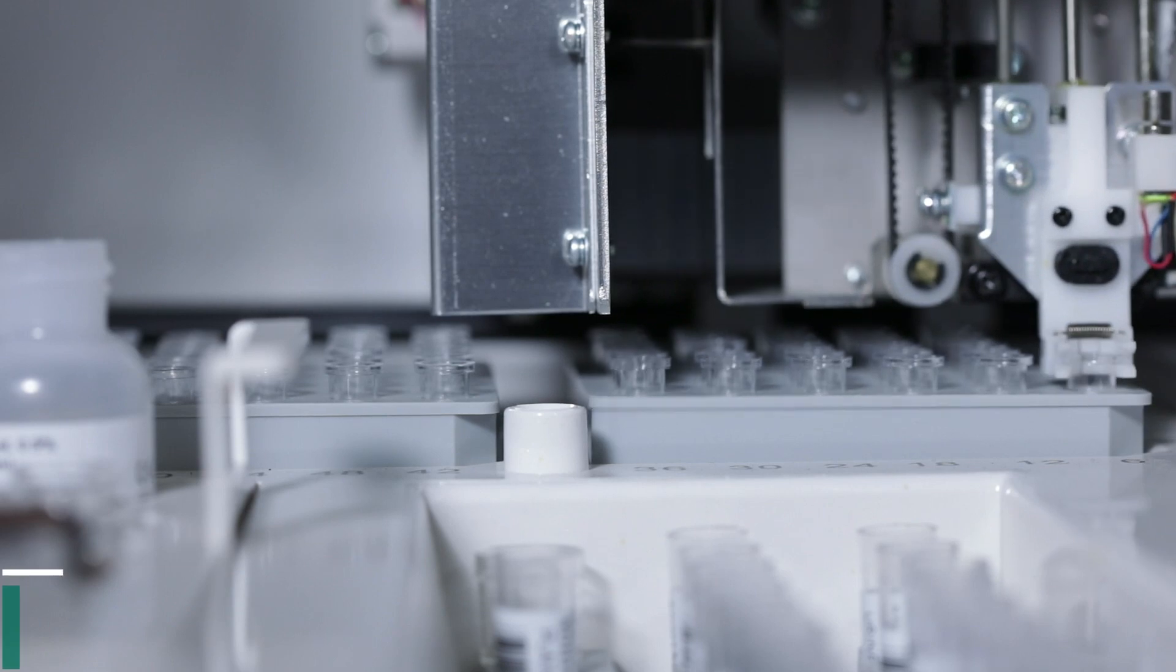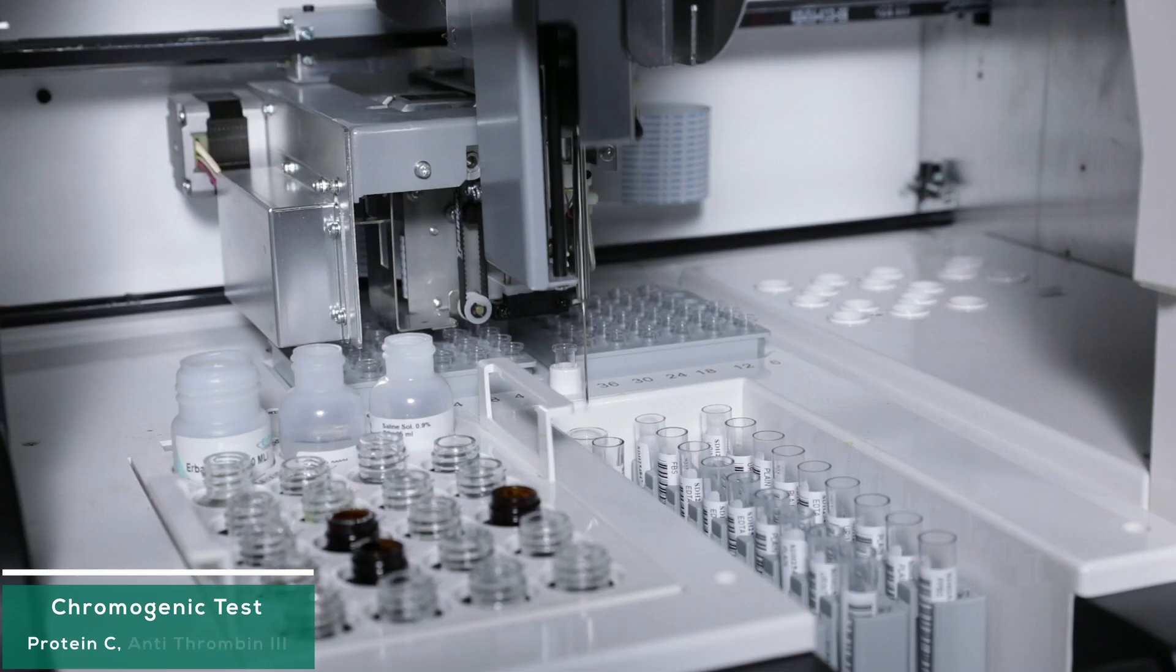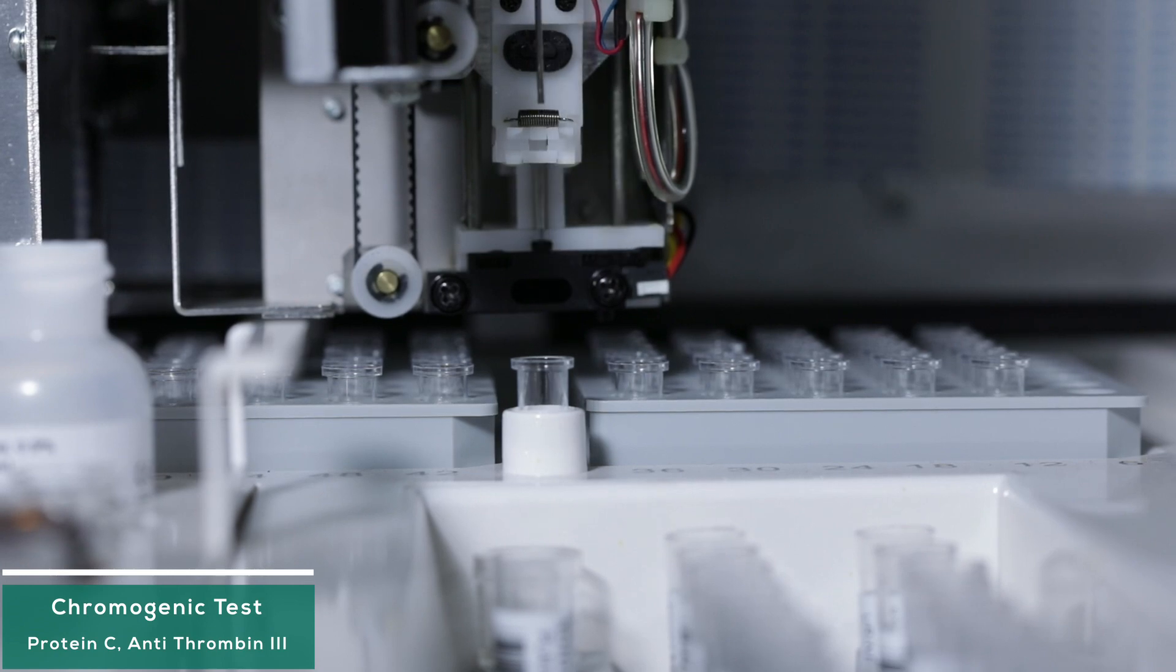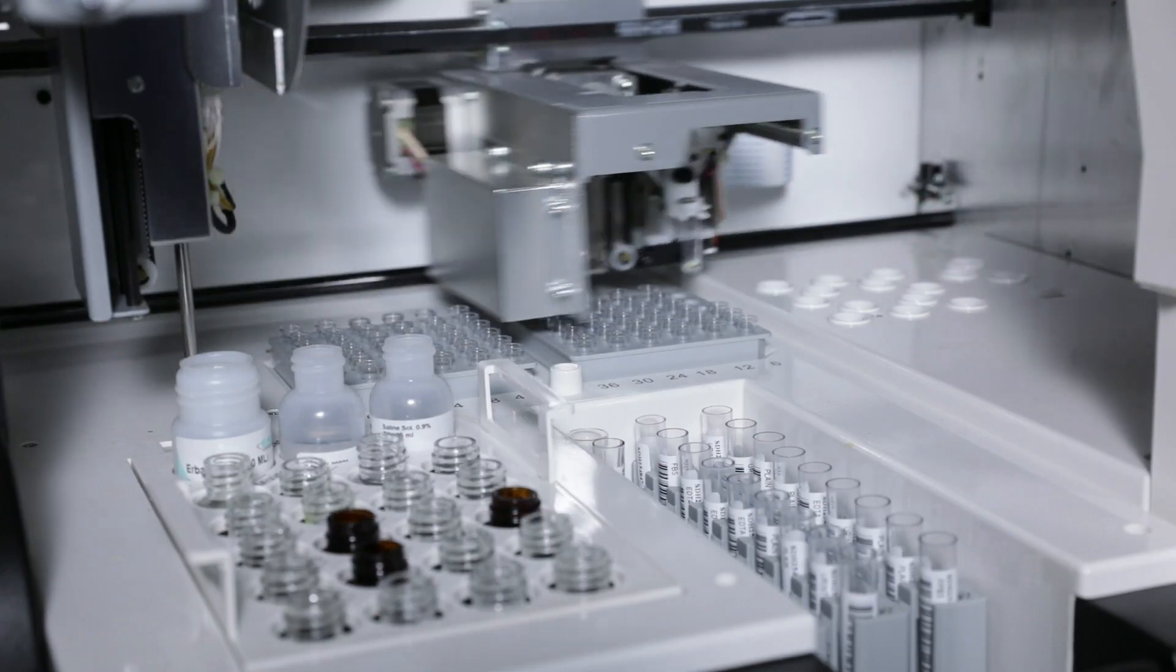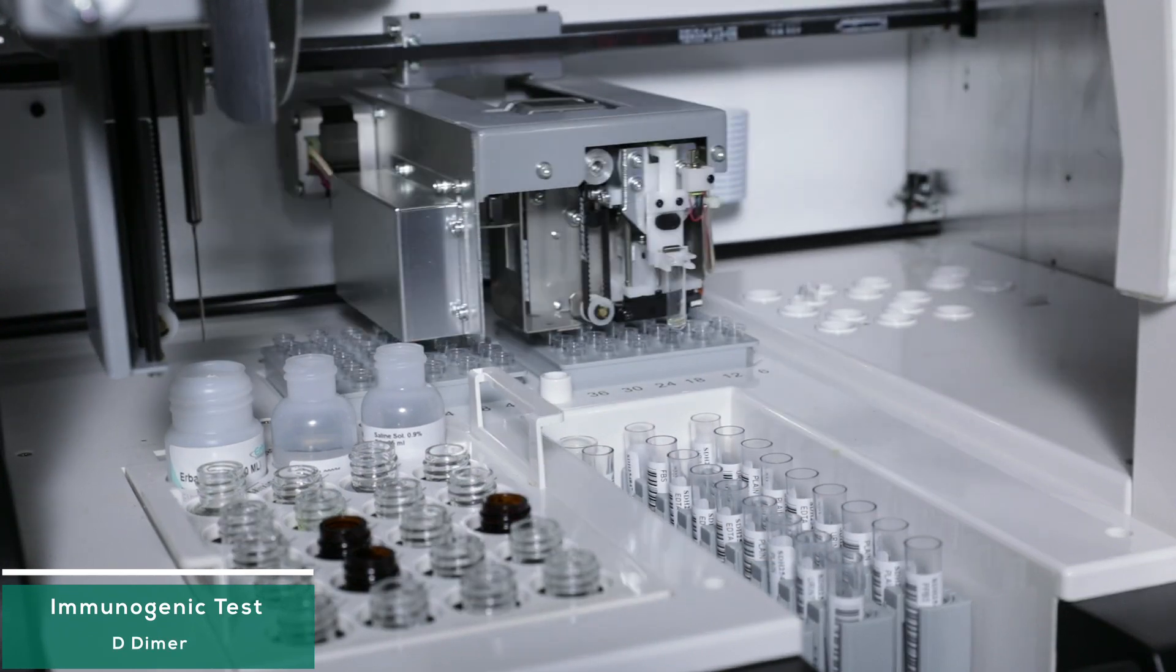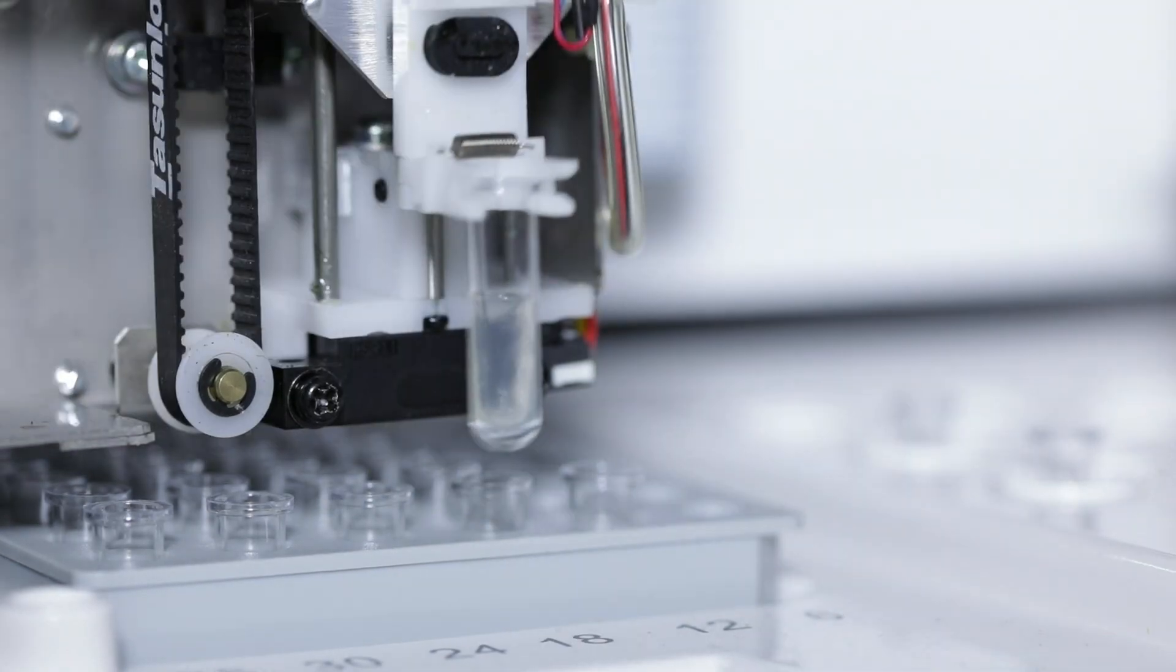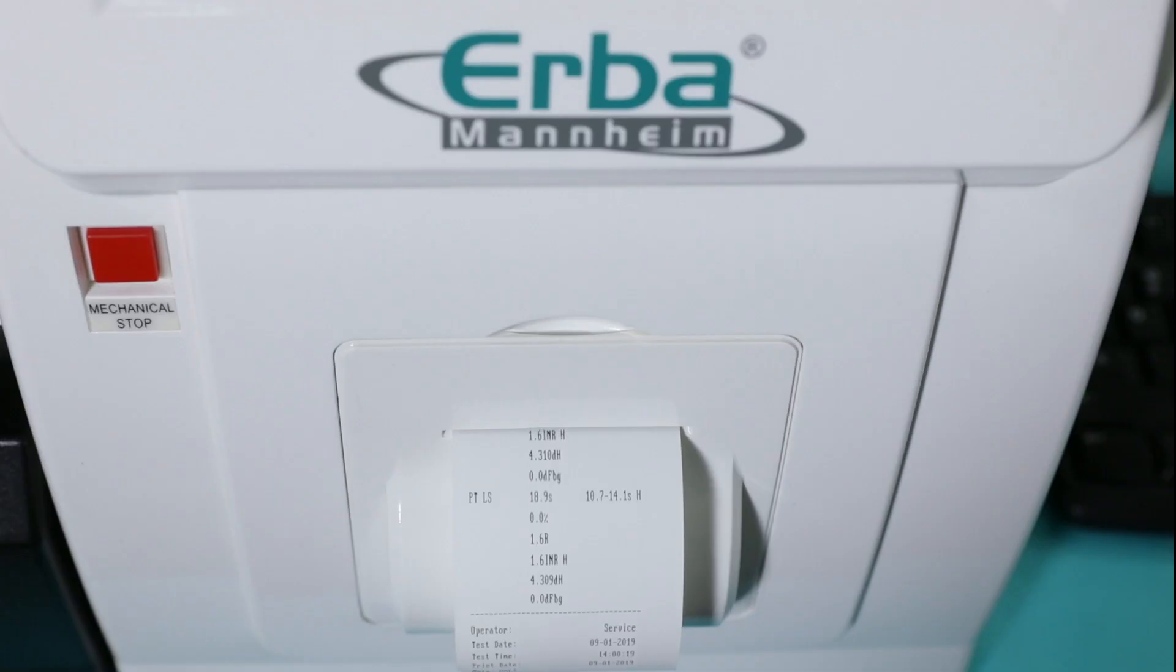It also performs chromogenic tests like Protein C, Antithrombin 3, and immunogenic tests such as D-dimer. One can program new tests also. It provides the widest range of tests in its class.